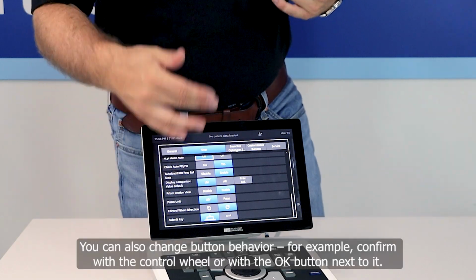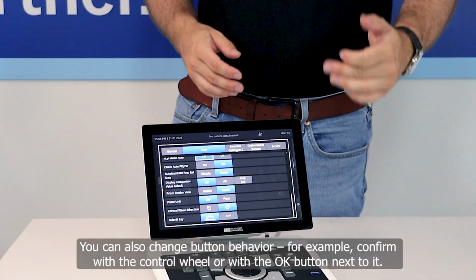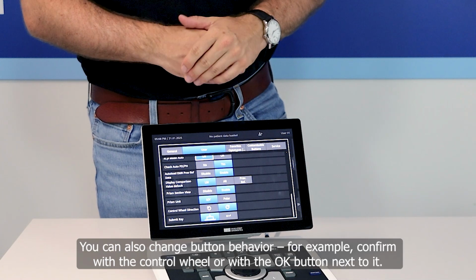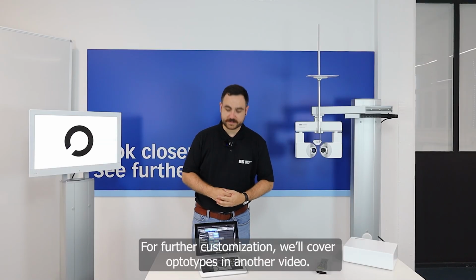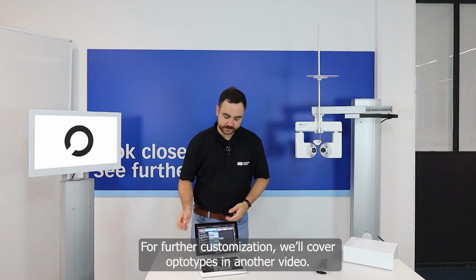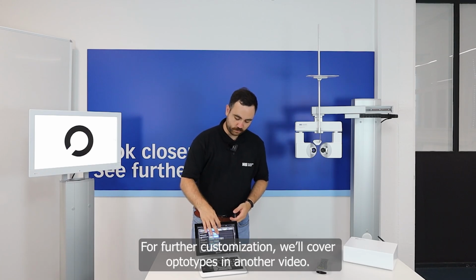Also, you can change the buttons, so to say OK with the control wheel or with the OK button next to it. For further customization, we will have the optotypes. That's another video.